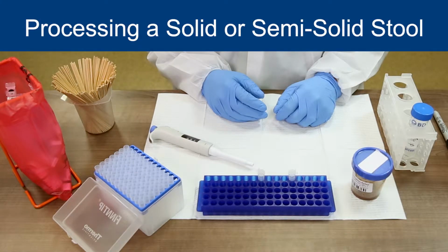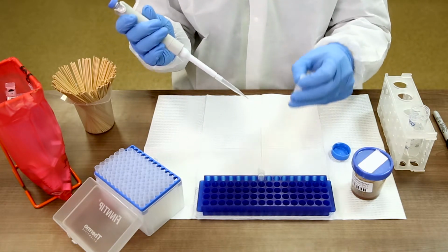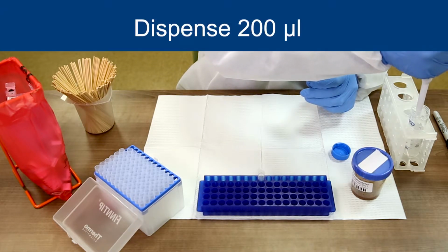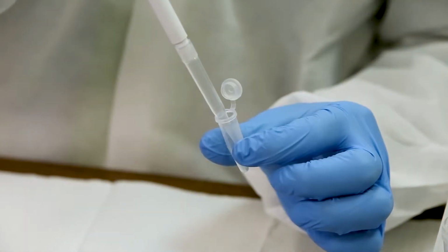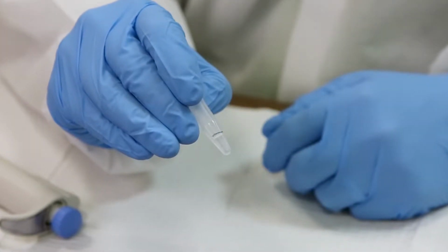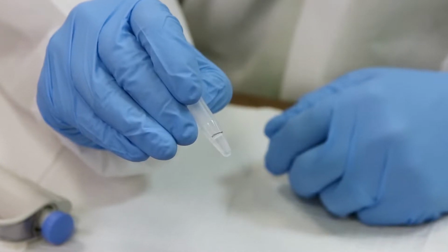If the specimen is solid or a semi-solid stool, process these specimens using the following steps. To ensure the precise transfer of 200 milligrams of semi-solid or solid stool, use a gauge tube. The gauge tube can be made by dispensing 200 microliters of distilled water into a clean centrifuge tube using a pipette with a disposable tip. This tube will be used as a gauge to confirm the correct volume is being used.